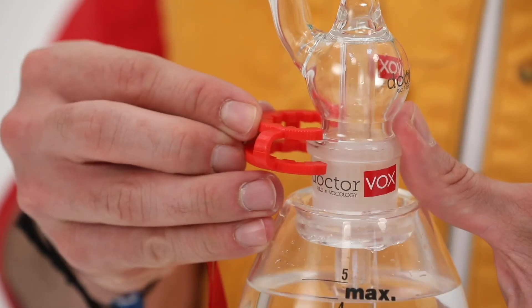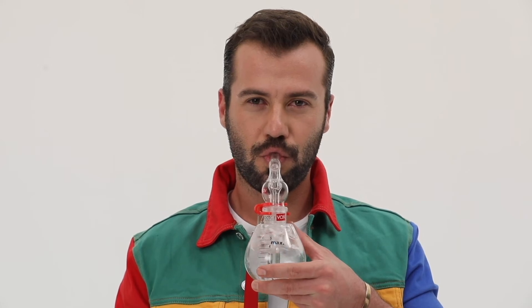As the water level is higher, the back pressure increases. Increasing the back pressure is a directed effort that will ensure complete and balanced closure of the vocal cords.